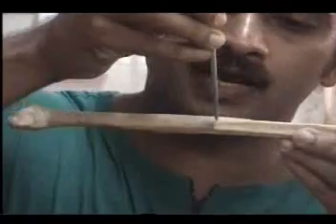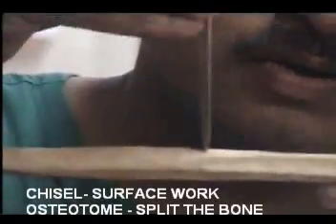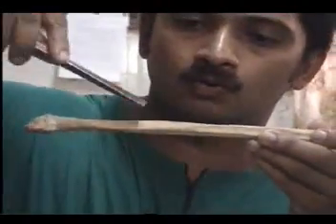Whereas the osteotome — the name itself tells you how it is used. It is used to hit on the bone and cut the bone at the desired place, basically after pre-drilling it with holes in the desired direction. So the osteotome comes down on the bone like this, whereas the chisel comes down on the bone like this.